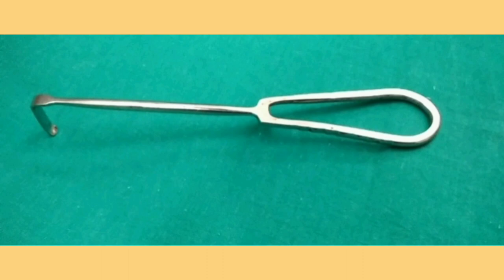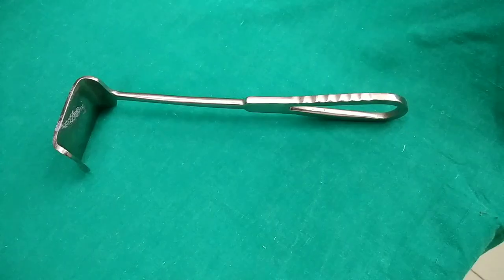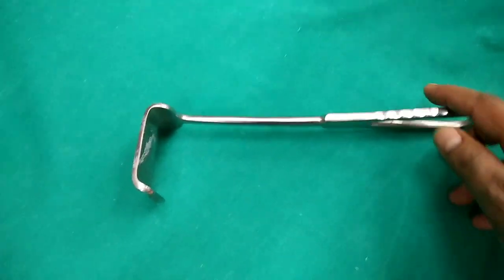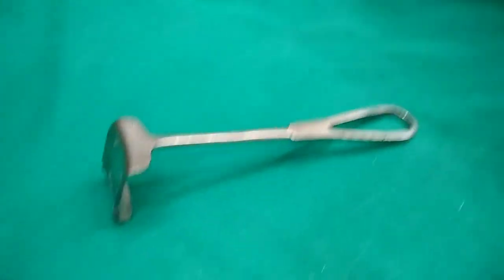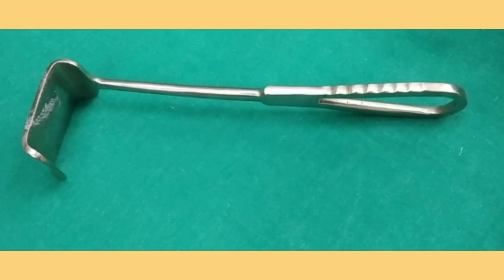This is a Langenbeck retractor. It is a retractor with a small solid blade and a long handle; it can also be double-bladed. The long handle is advantageous as it allows better maneuverability without obstructing the surgeon. It is used for retraction of skin edges or big vessels and nerves. It is used in operations like hernioplasty involving a lot of superficial dissection and retraction.